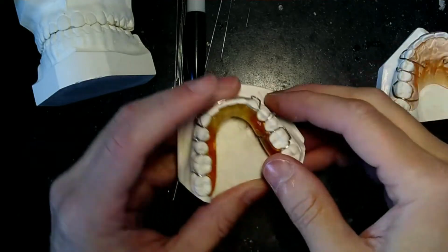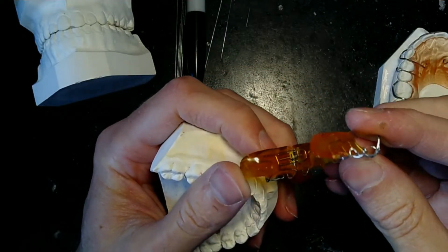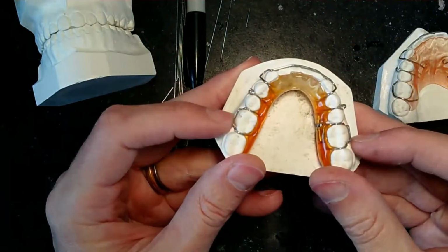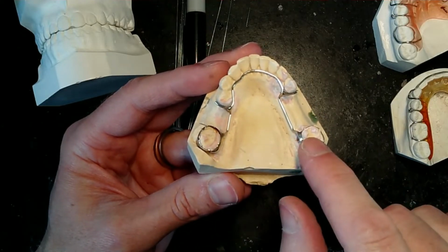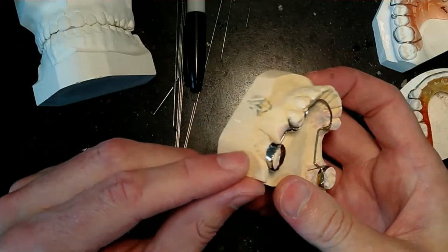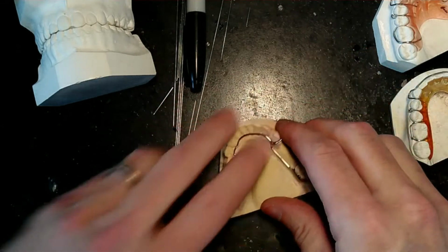So you have 5 hours to make these 3 appliances. This is a lower Hawley with a sagittal Schwartz, or sagittal expansion screw. The colors I just played around with while I was in school, but it has 2 arrow clasps, 2 lower Adams clasps, and a 3-3 labial bow. And then for your fixed appliance, you have to do 2 of these models. You have to fit bands on one, set it aside, come back, fit bands again, and then make your appliance. You'll get graded on just the bands by themselves, how they fit and how they're adapted. Then you make a lingual arch with soldered spurs, and that's it. So you have 5 hours to do this, mainly these 3 appliances.